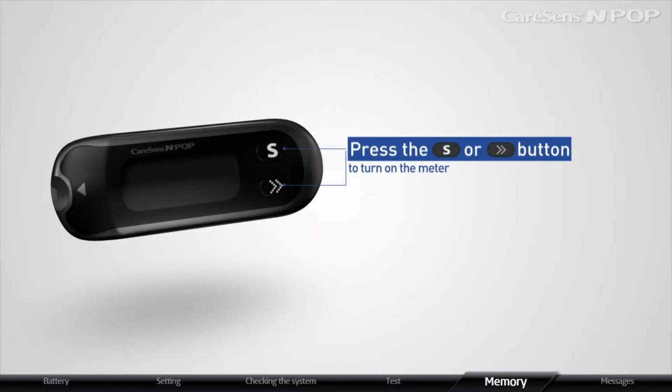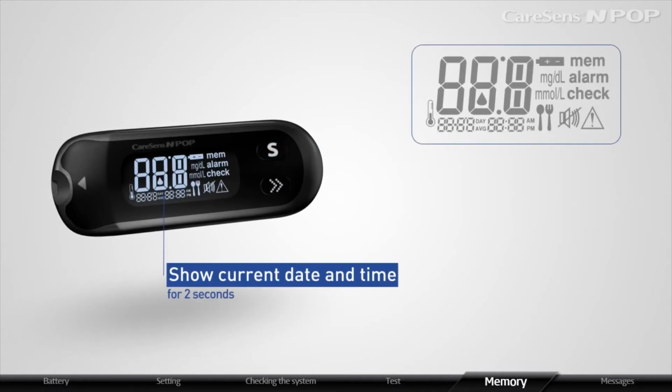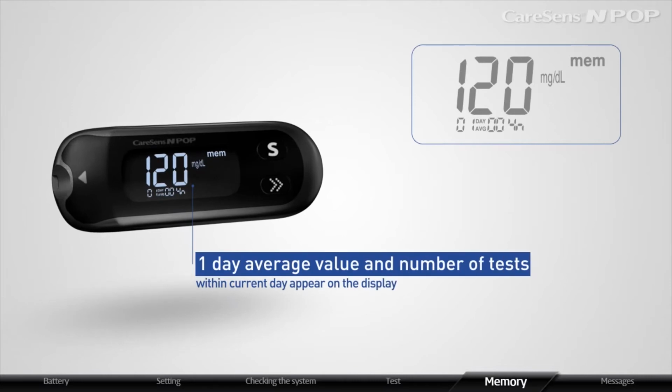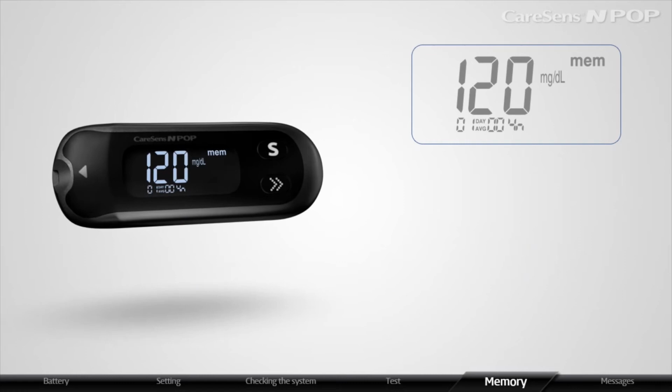Press the S button or the arrow button to turn on the meter. The meter will show current date and time for 2 seconds. Then, the one-day average value and number of tests within current day appear on the display.